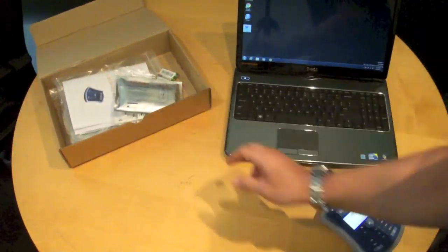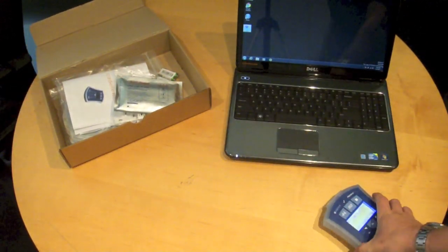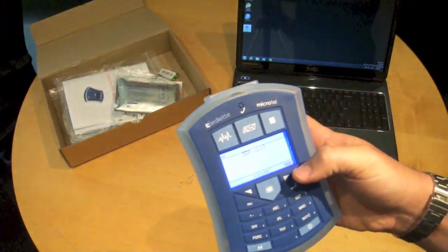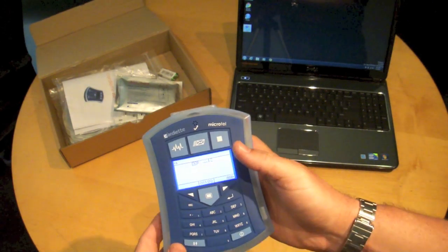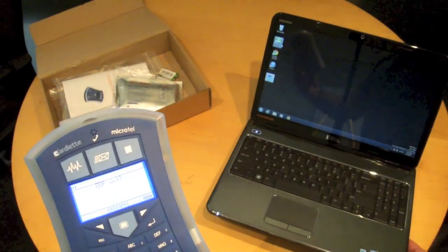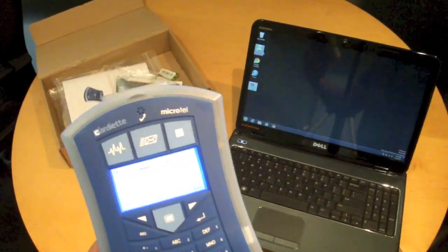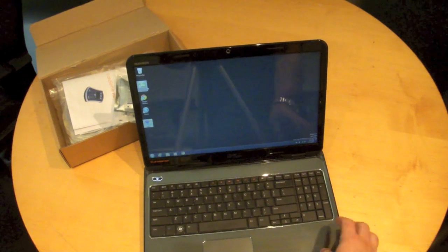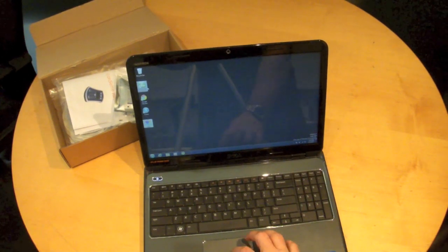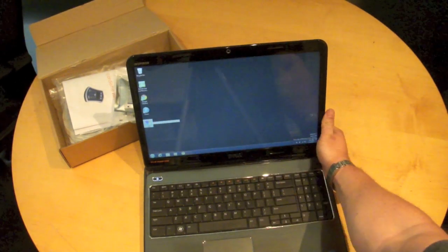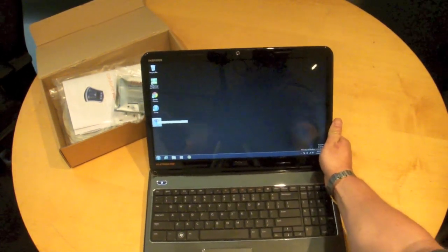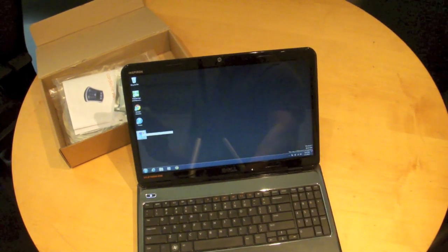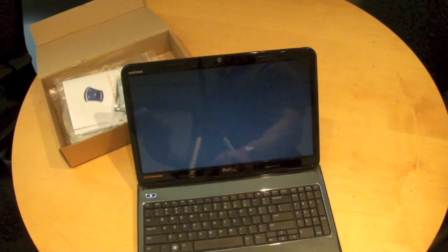I'll do my best here in this video to give you a demonstration of the PC connection option. So I have turned the device on and the unit comes with the Cardioline Cube software suite which I will go ahead and open.